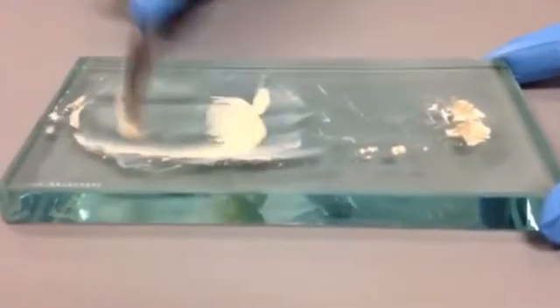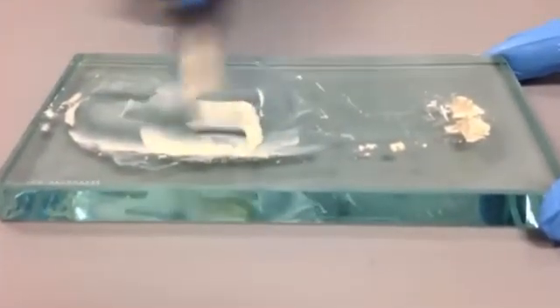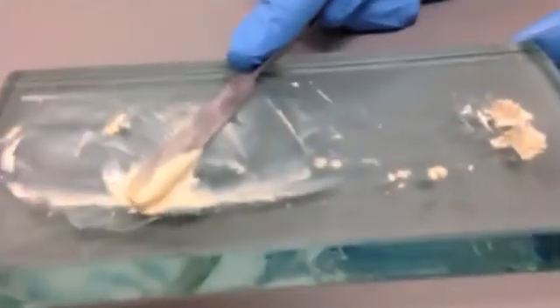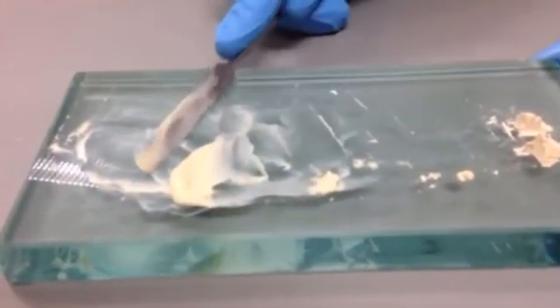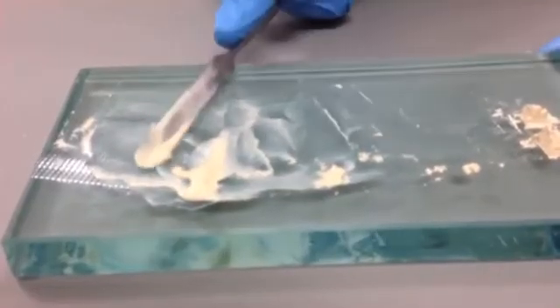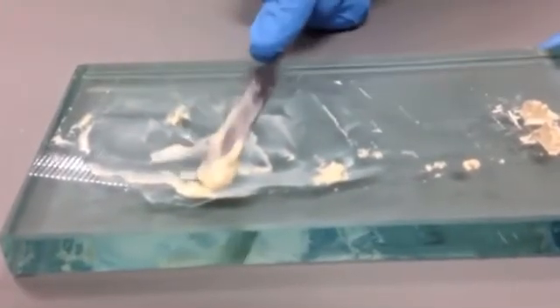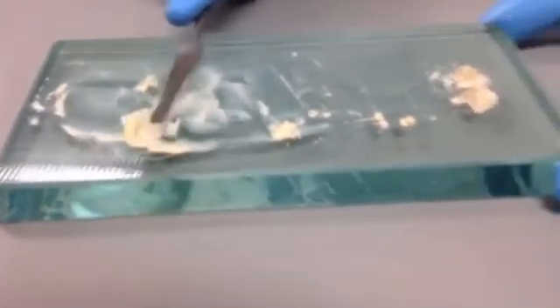So she's getting close. You try to incorporate the material into one area. Okay, so now that's the first consistency we've achieved.